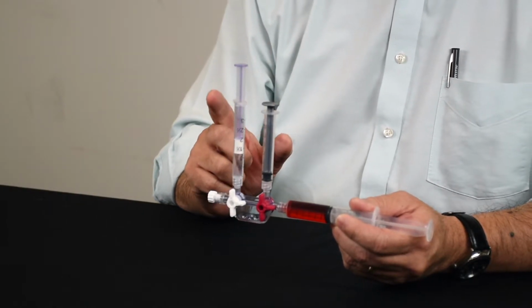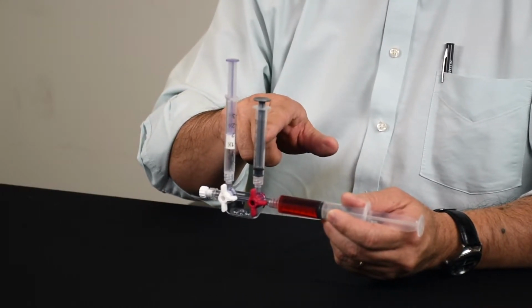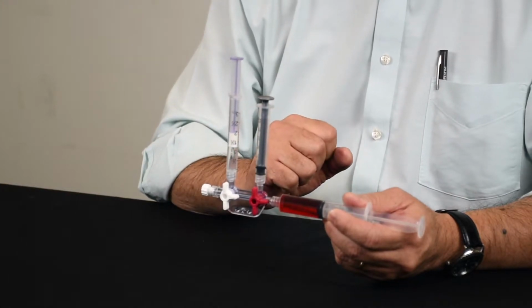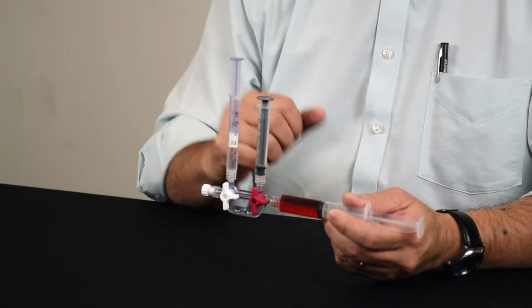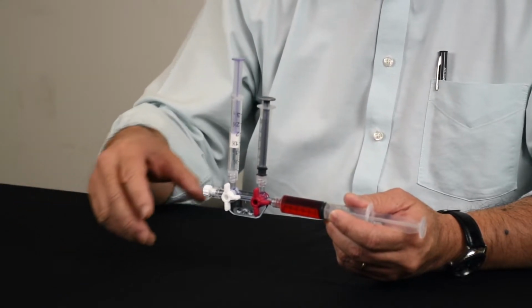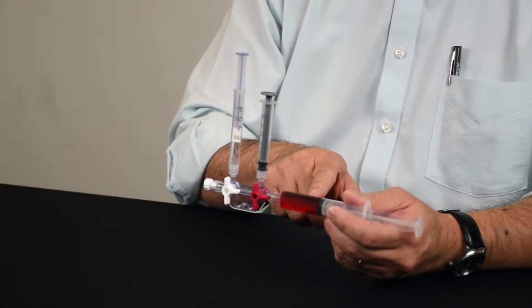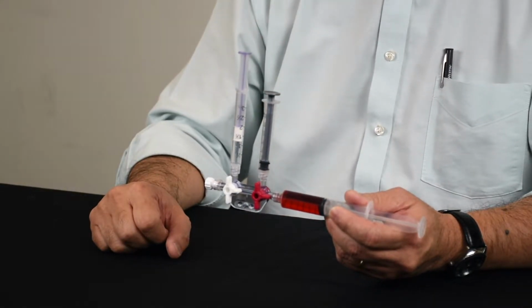And what I'm going to do first is inject some of this blood into a non-venting aspirating syringe, which is the common syringe used today when drawing off of an arterial line catheter. And you'll notice right away there's going to be a problem in using this particular sampling technique. So what I've done is I've adjusted the stopcock valves here that allows the sample to move from the blood syringe only to the aspirating syringe first.